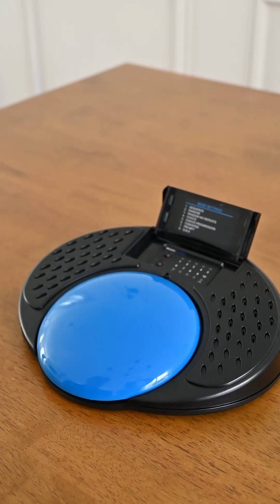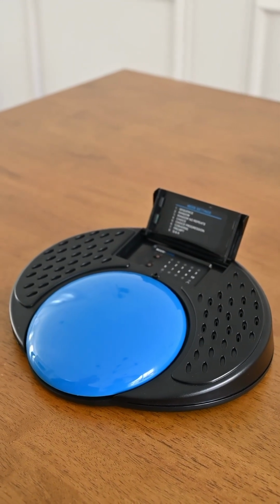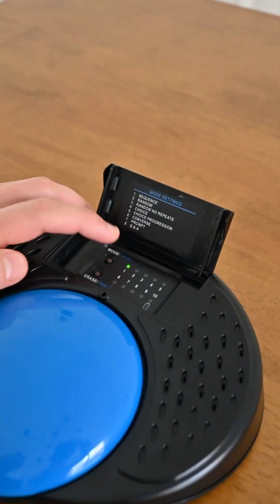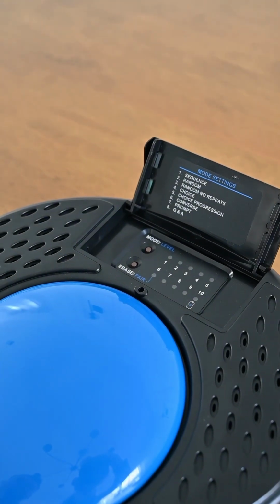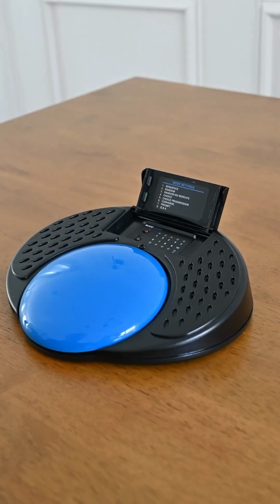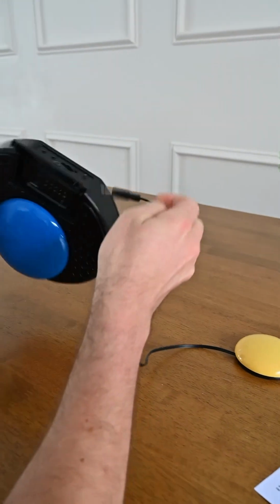So now we're going to go into choice mode, but we want to use some different messages. So I have some different messages recorded on level 2. So I'm going to hold the level button and jump over to level 2, which has different messages in it. Level 2, choice. And with choice mode, you're going to want to plug in an external switch, because we have 2 choices on this mode.